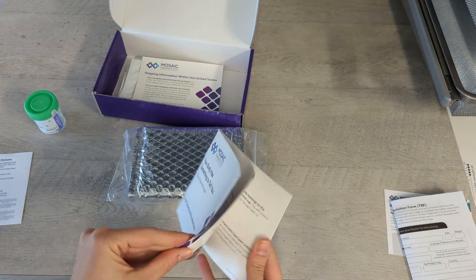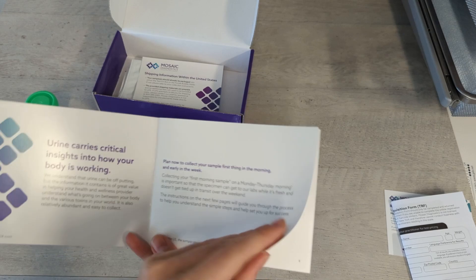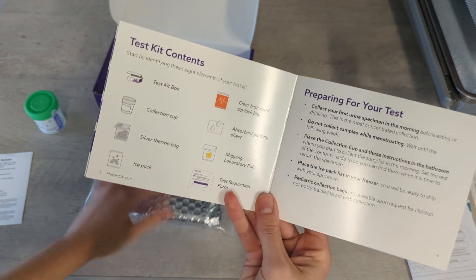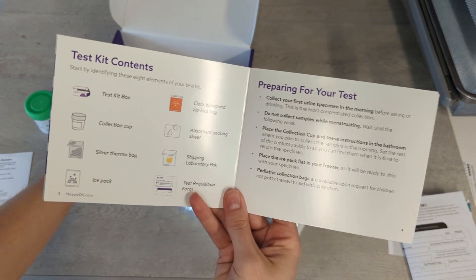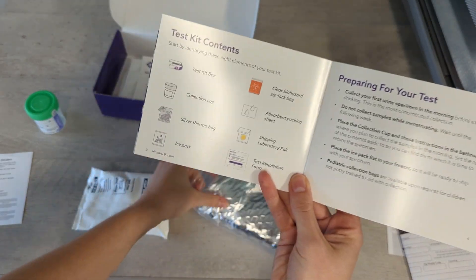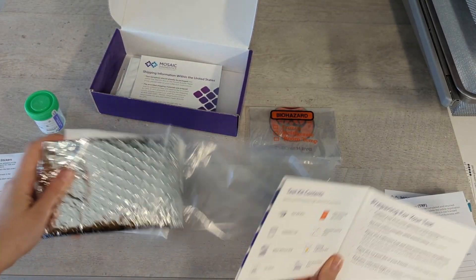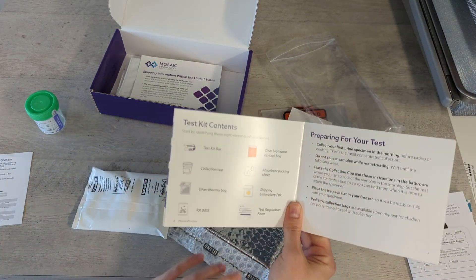These are the test kit collection instructions. This test kit through Mosaic can be used for a couple different urine collection tests, so let's go through what we're going to do for the mycotoxin specifically. There is an ice pack in here — go ahead and put that in the freezer a couple days before you test, just to make sure it's nice and frozen in time. We've also got a biohazard bag and a cold pack as well.